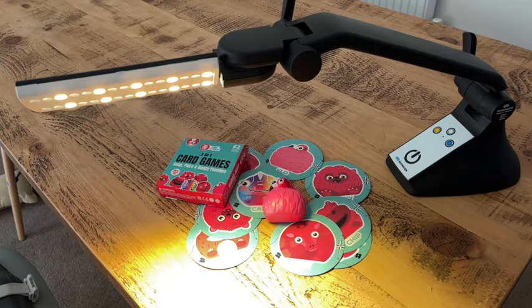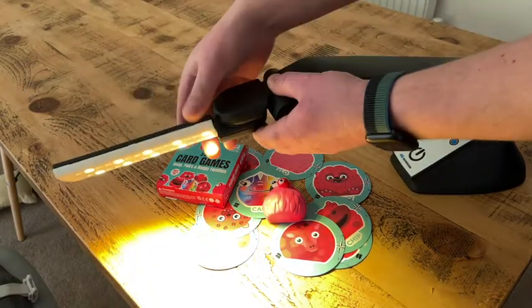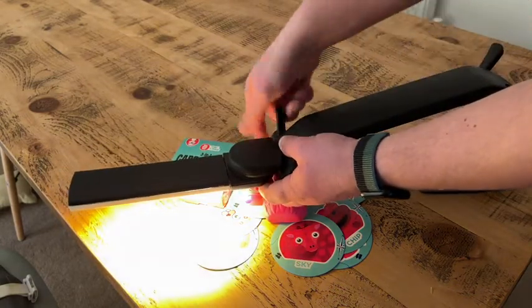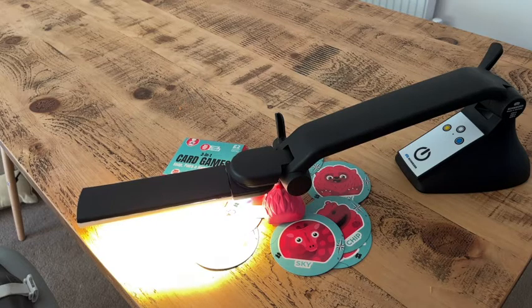The other thing that's good and unique with the Multi-light is that you can actually get it almost millimeters away from what you want to read. As an example, if I just loosen these, we can lower the lamp and get it literally only a few centimeters off the page. That's important because you're bringing the light source close to what you either want to read or maybe what you're writing on. And that concludes this week's Problem Solved.